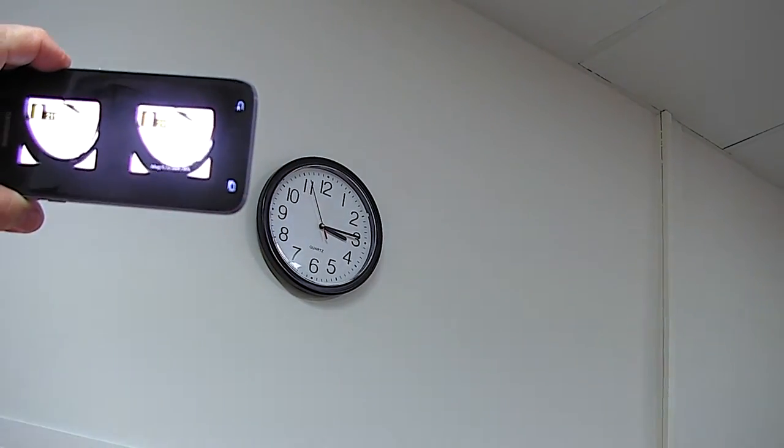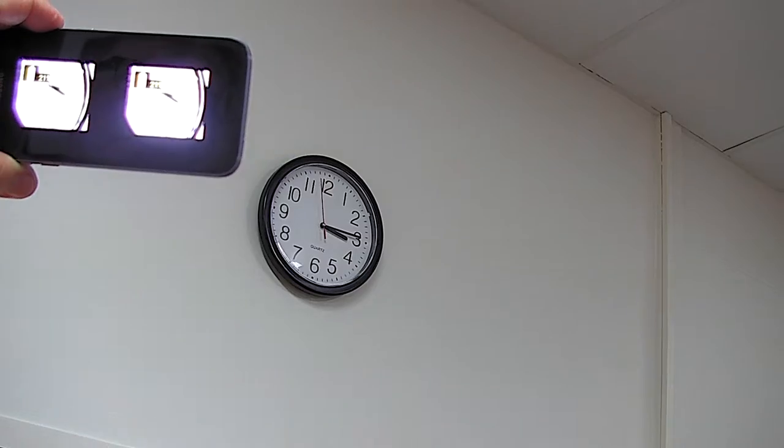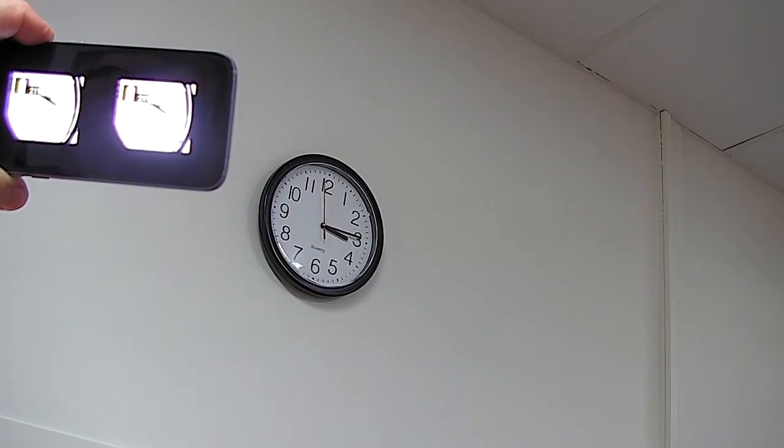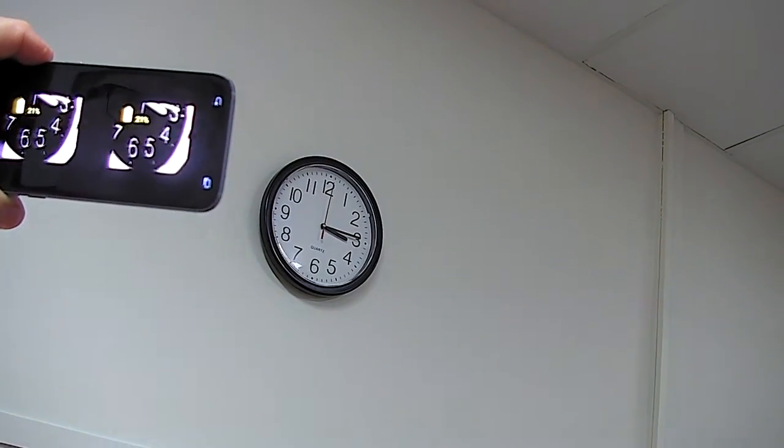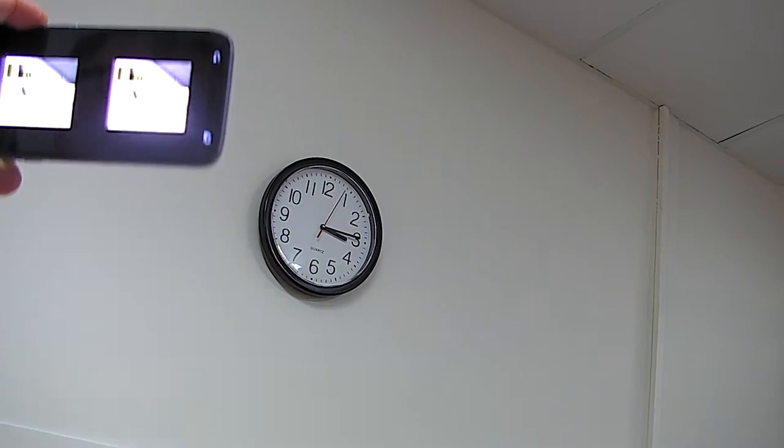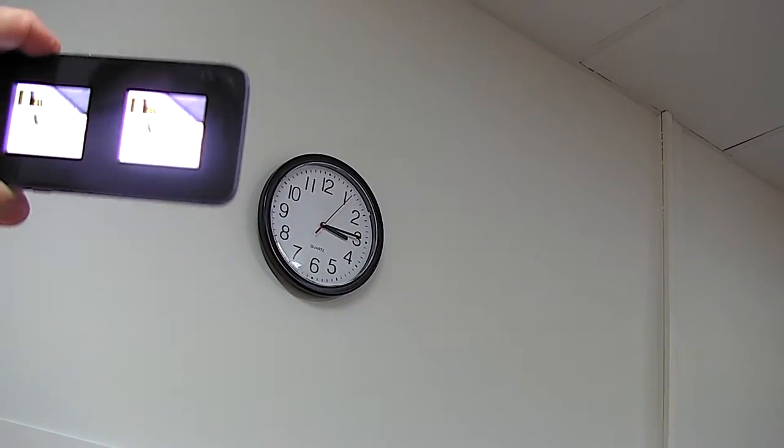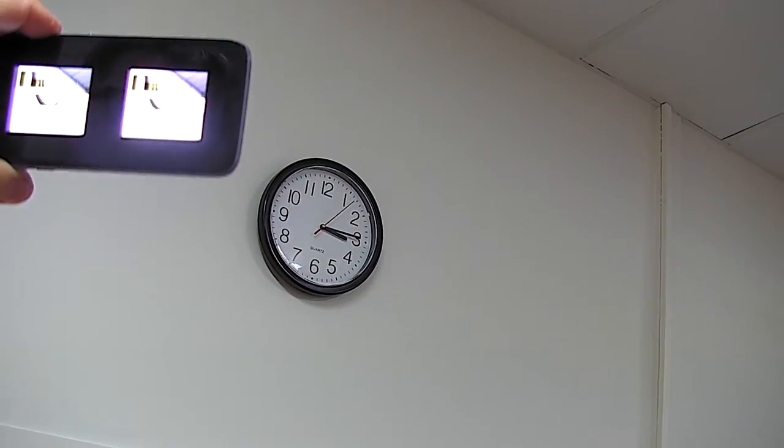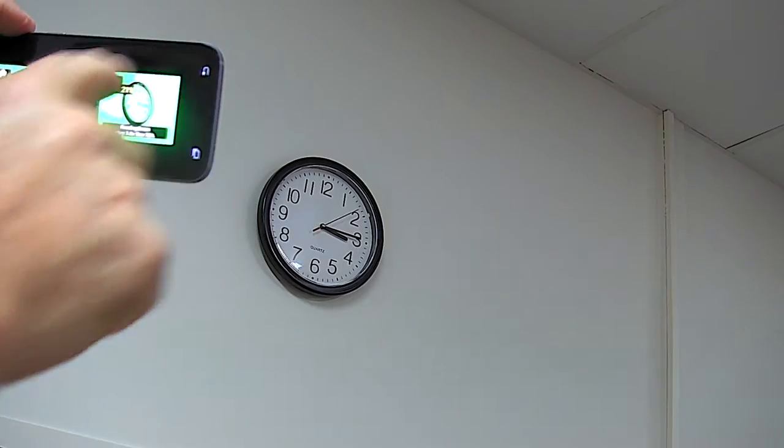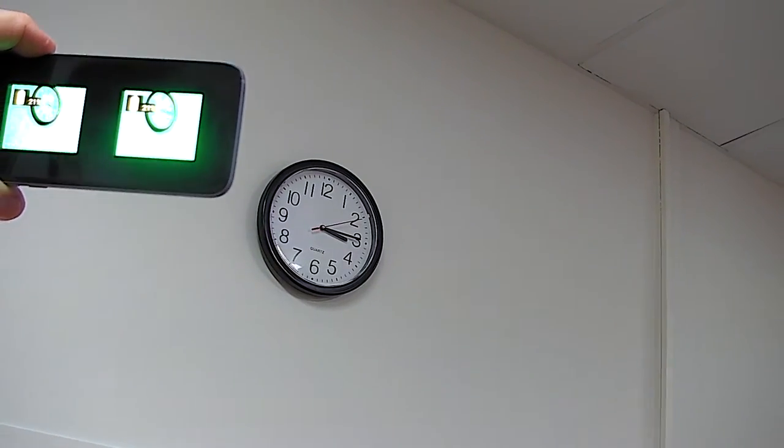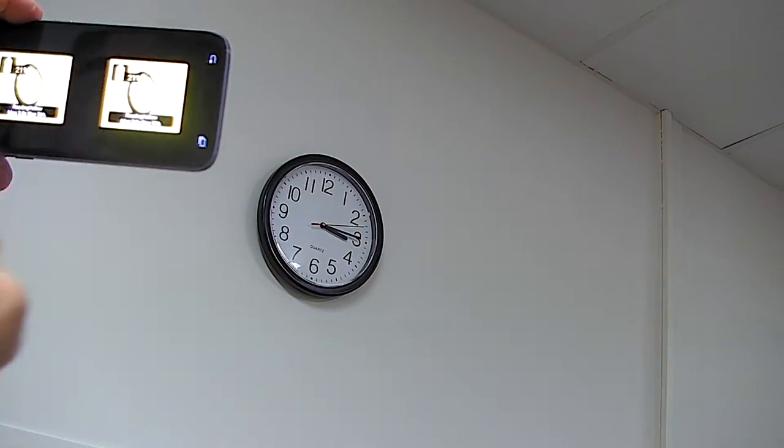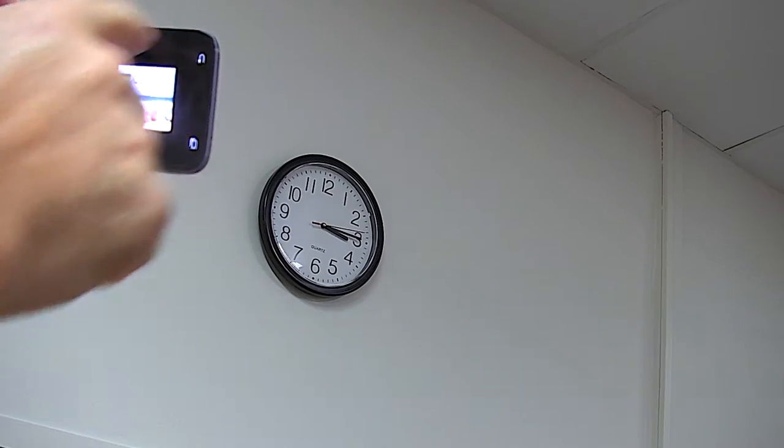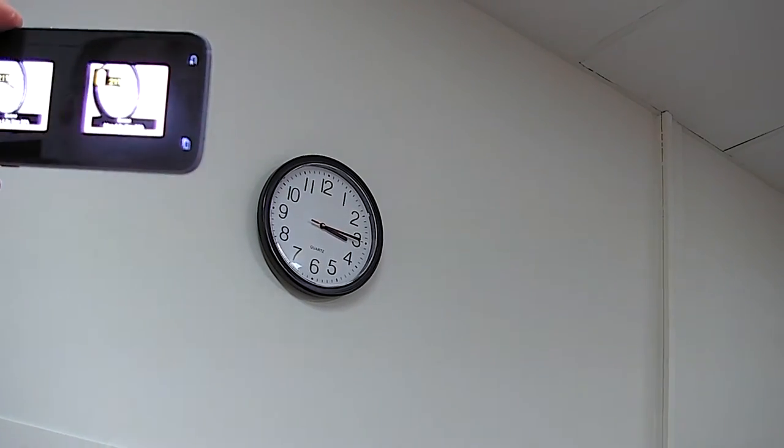We have a reading view which is high contrast black and white, reading inverted which is white on black, a reading line which is like a magnified ruler for context, green to apply a filter, yellow, and then back to focus.